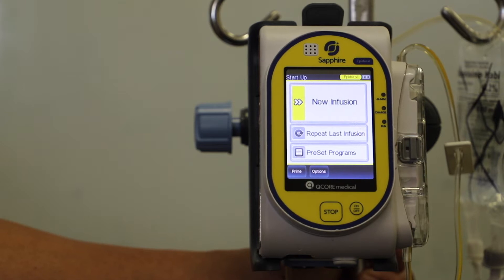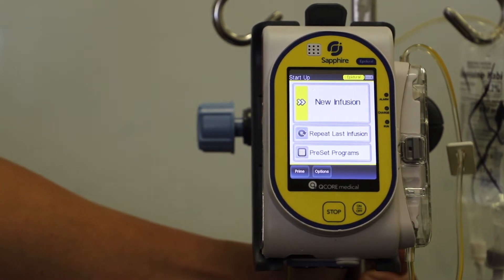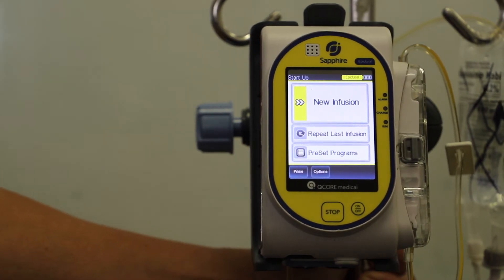So now we're going to set up a continuous local anaesthetic infusion. So what we need to do is make sure we're in the right mode.